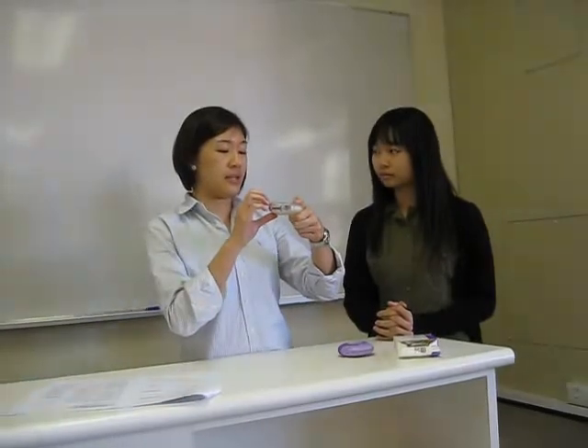So, how you get ready to inhale: put it aside near you. Then you exhale away from this device — remember, don't exhale into the inhaler. Exhale as far as comfortably as you can. Then put the mouthpiece onto your lips and inhale as deep as you can. After you inhale, put the device away and hold that breath for about 8 to 10 seconds, as long as you're comfortable. After that, the drug should have deposited into your lungs.